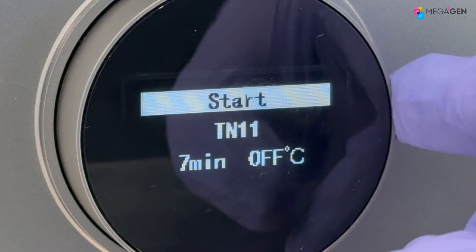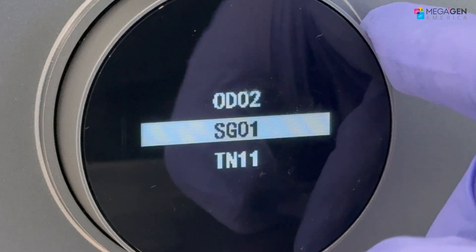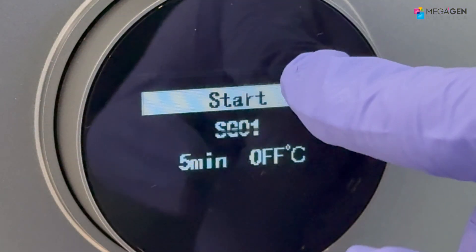The curing parameters are also in the system, so select the correct resin brand and type, and we'll wait.